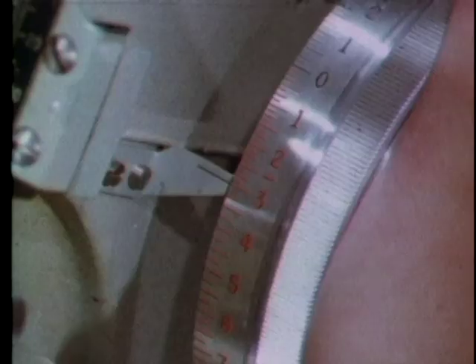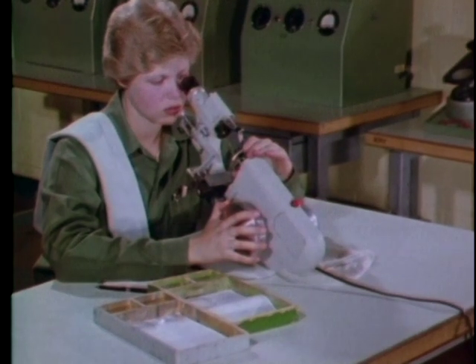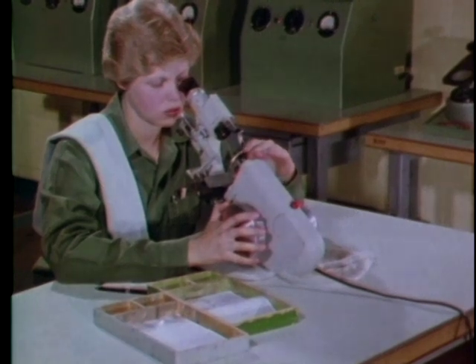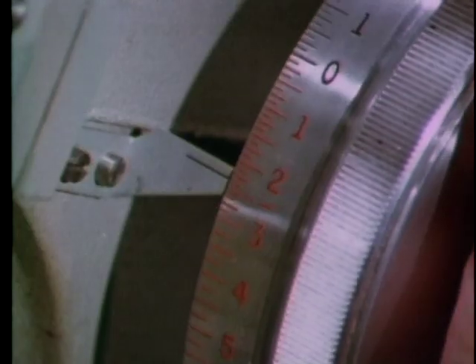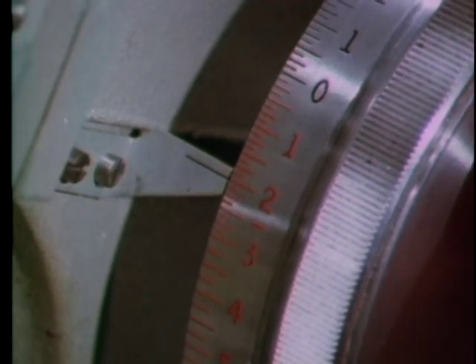Next, rotate the power wheel farther in the same direction until the broad lines come into focus, then center the lens. You've gone from minus three to minus two — or one diopter in the plus direction.